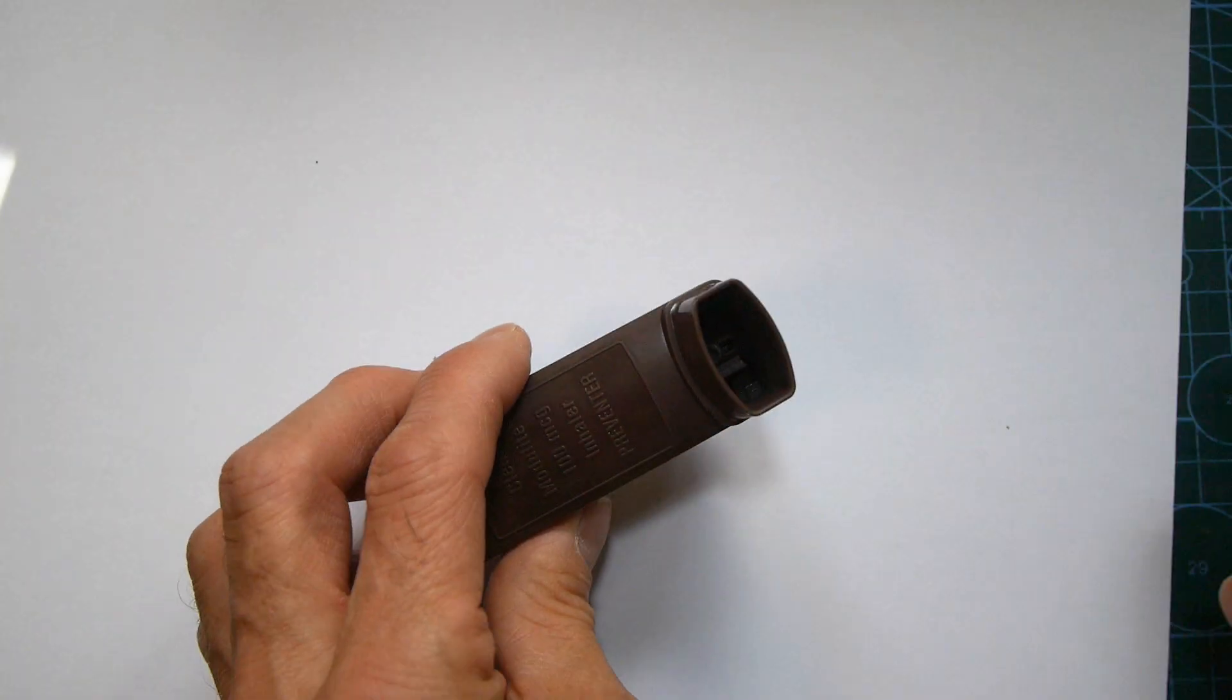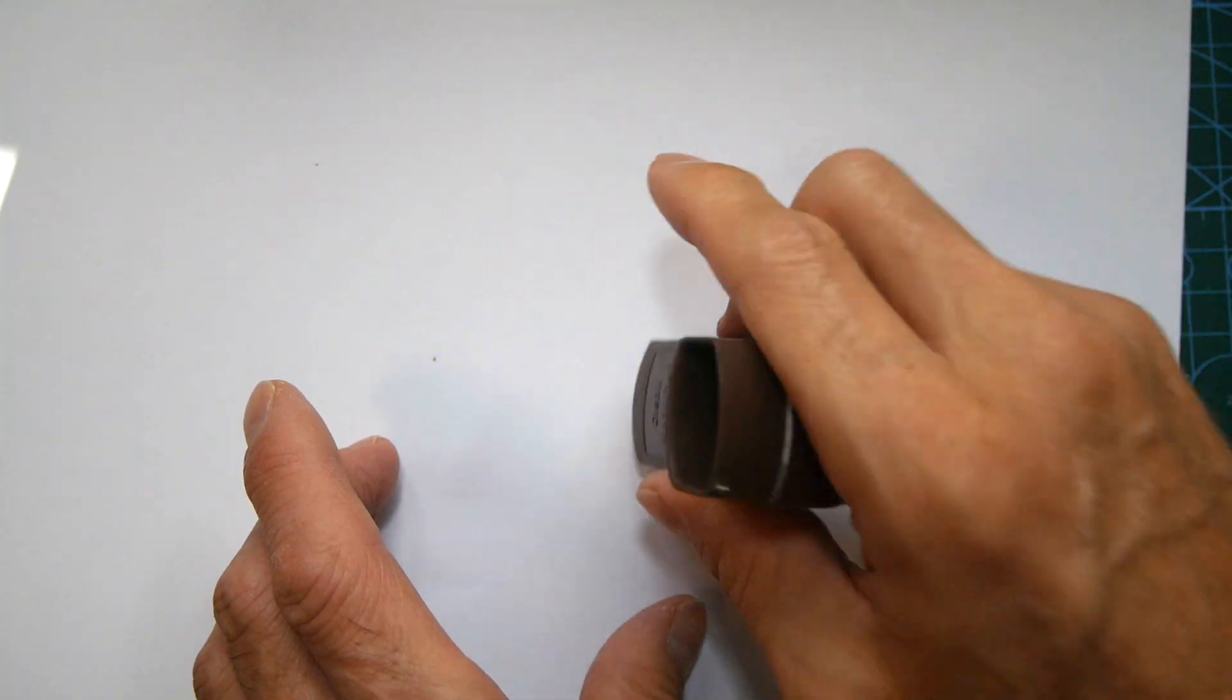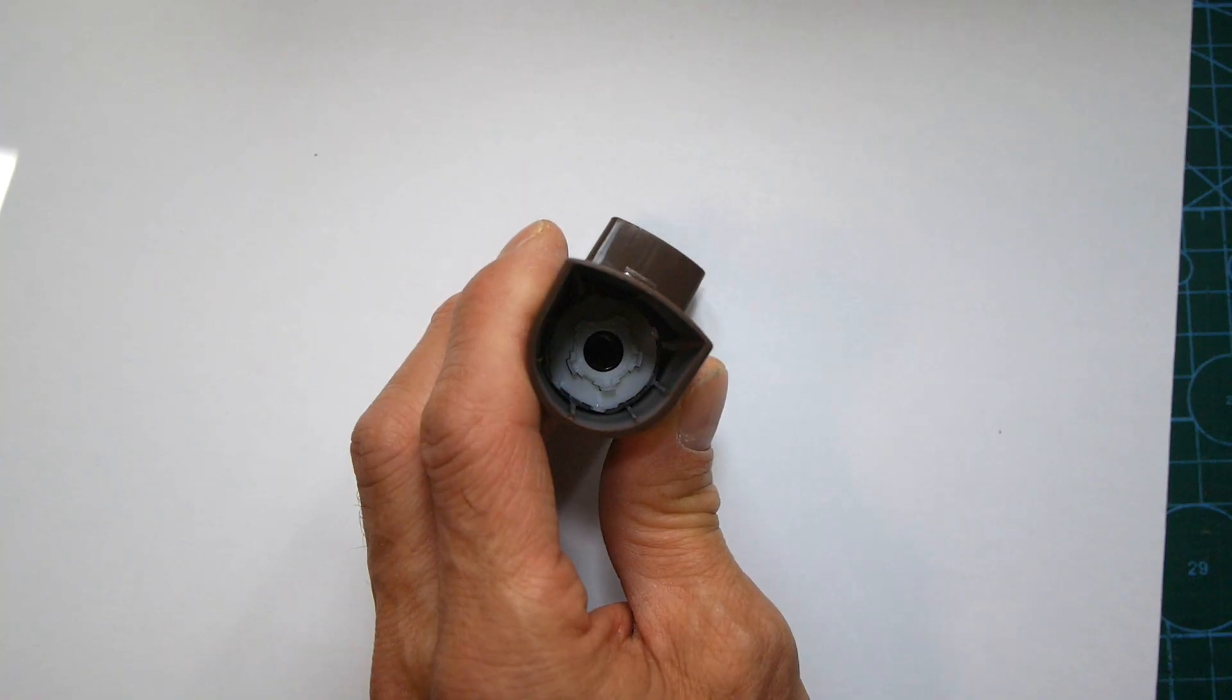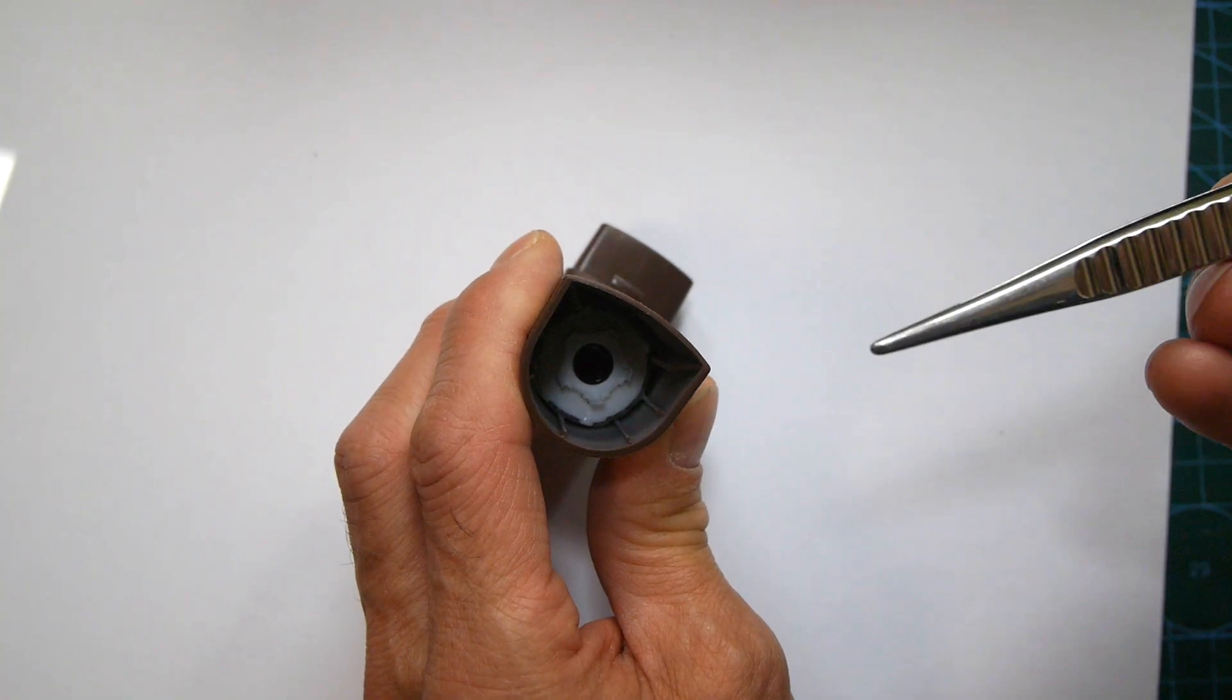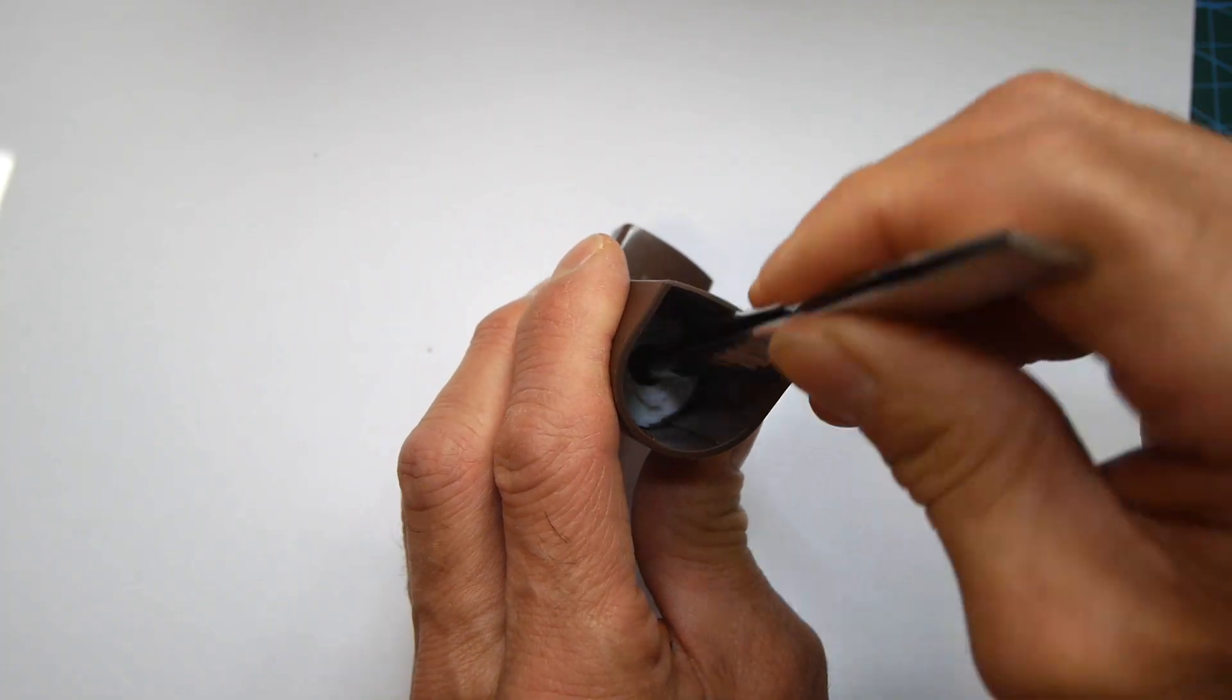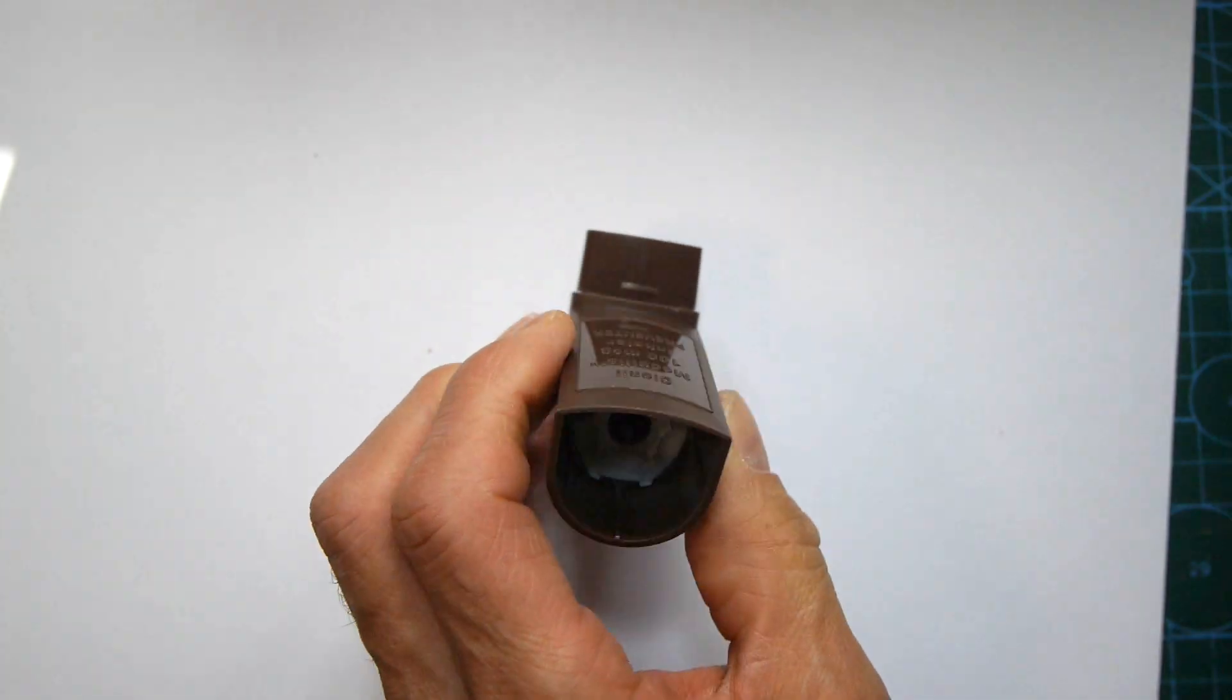There we go that's released it and it's now loose in here and the tricky bit is getting it out. What I often do is try and use a pair of tweezers to sort of prise it out.